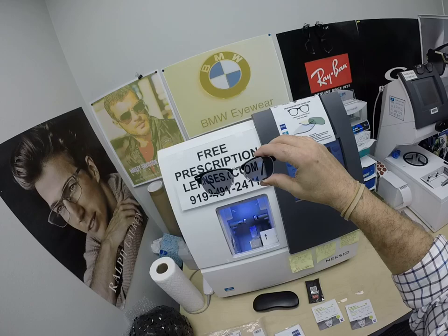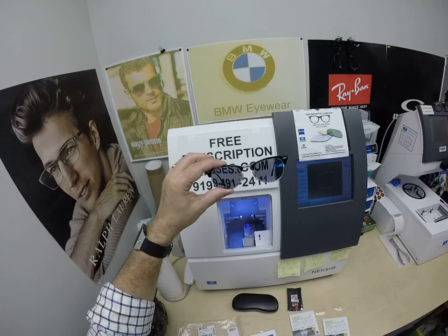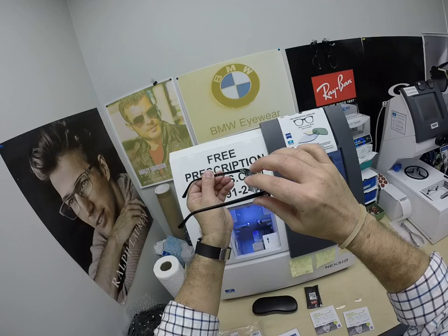What I was about to say was that the photochromic lenses were the original blue-blocking lenses. These actually block 50% to 70% of the harmful blue light emitted from today's electronic devices — cell phones, tablets, computer screens — and of course the number one source of blue light on the planet: the sun.